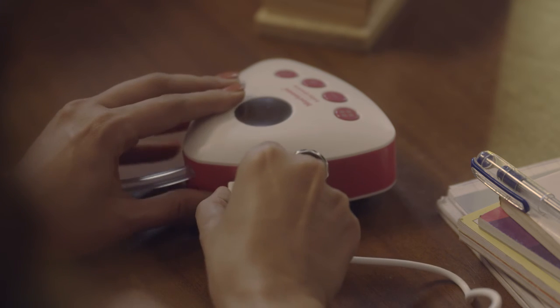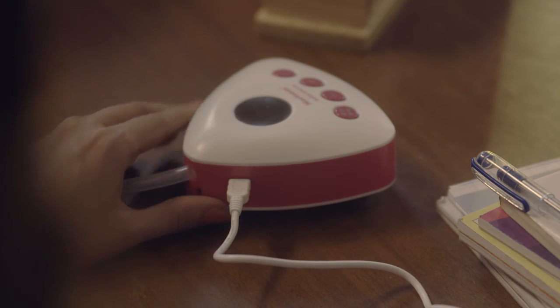You can charge the pump like a mobile phone and use it freely — you don't need to sit near a socket. Once you finish expressing and storing your milk, clean the pump with Morrison Bottles and Accessory Cleaner, then put all the clean parts to sterilize for your next use. So try it, Seema — it will save you time and effort, and you will give your baby what she needs the most: your breast milk, even when you're away.